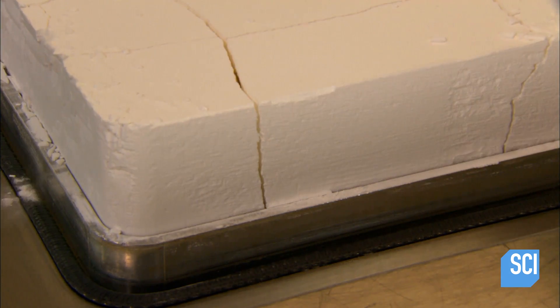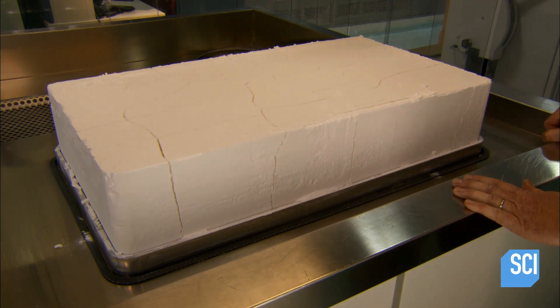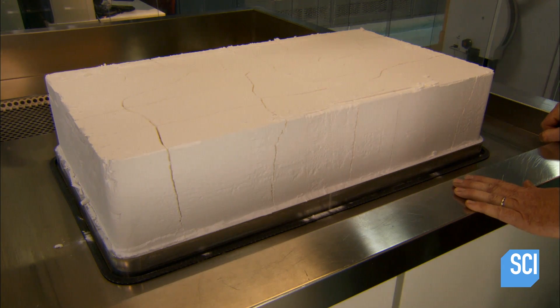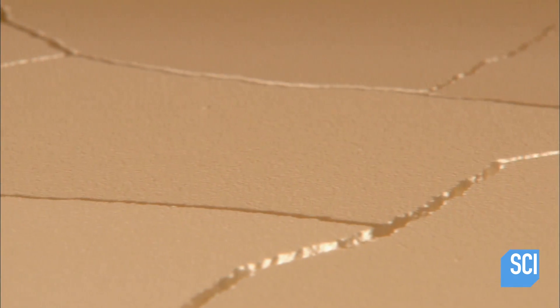One printer run produces personalized templates for up to 50 patients at a time, so the laser inscribes the patient's name and identification code on each part.